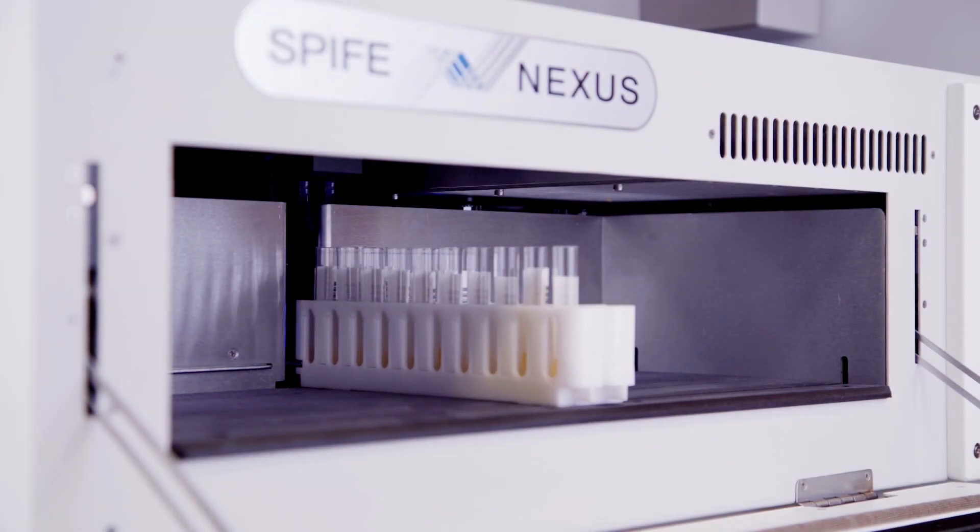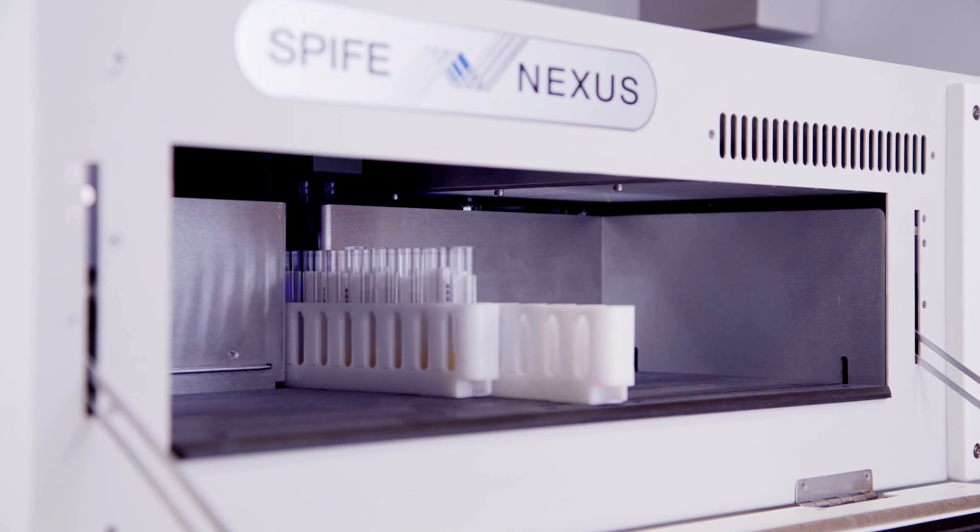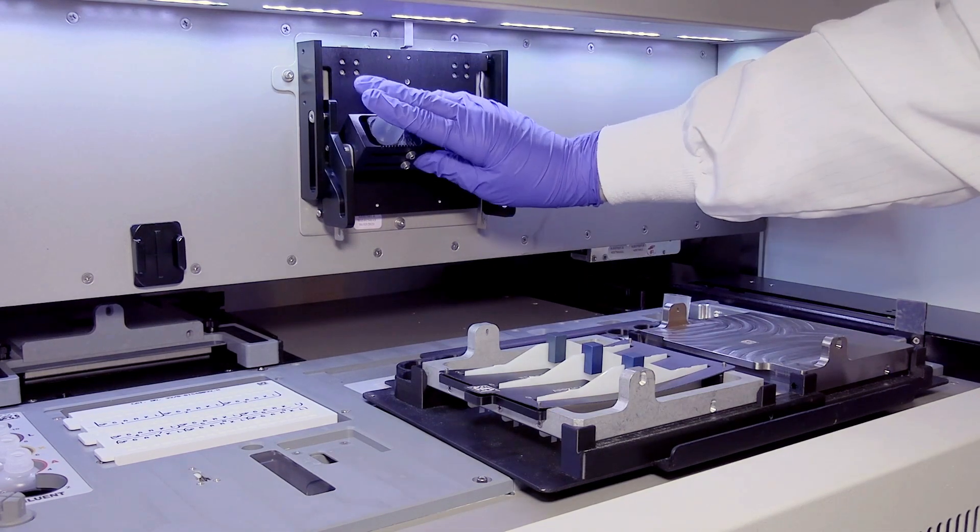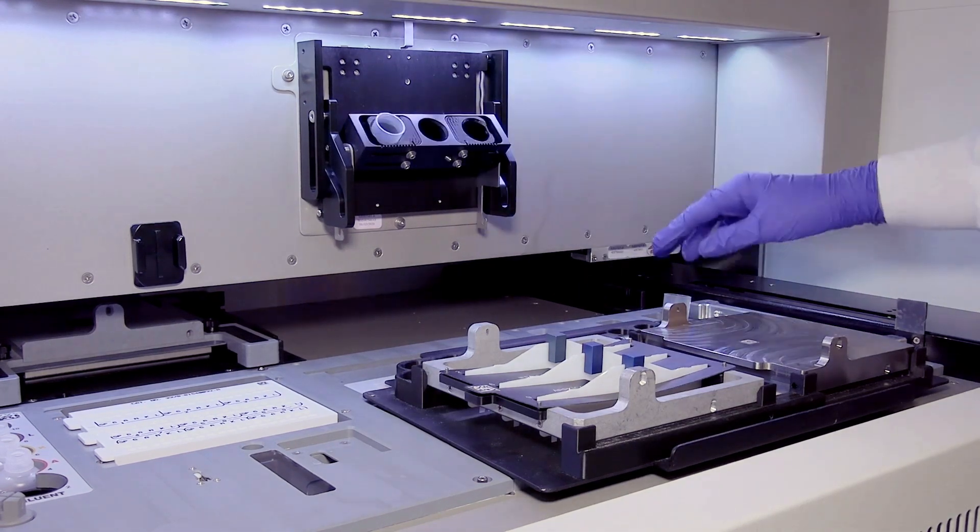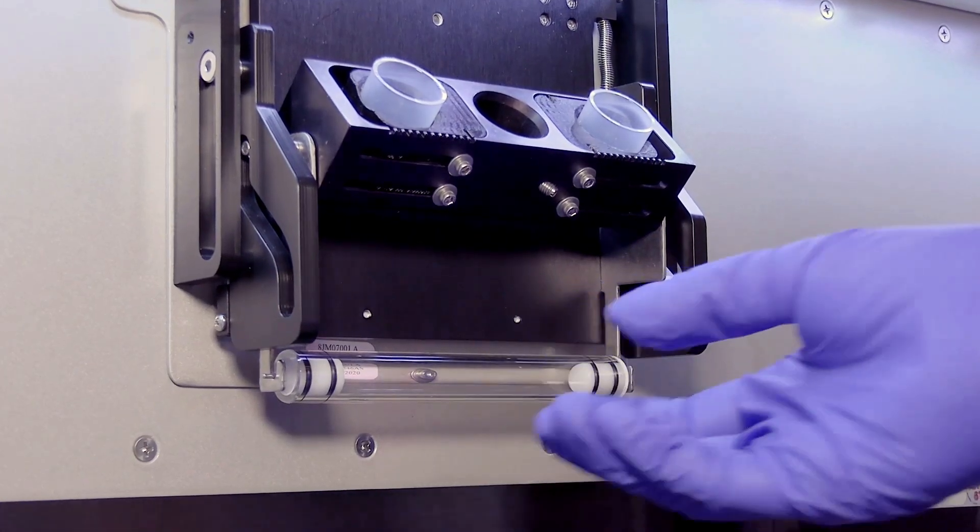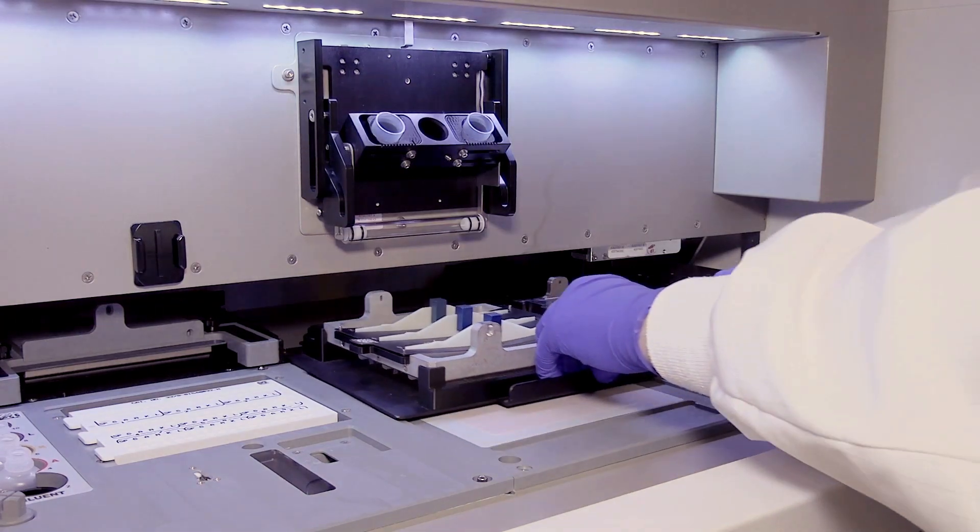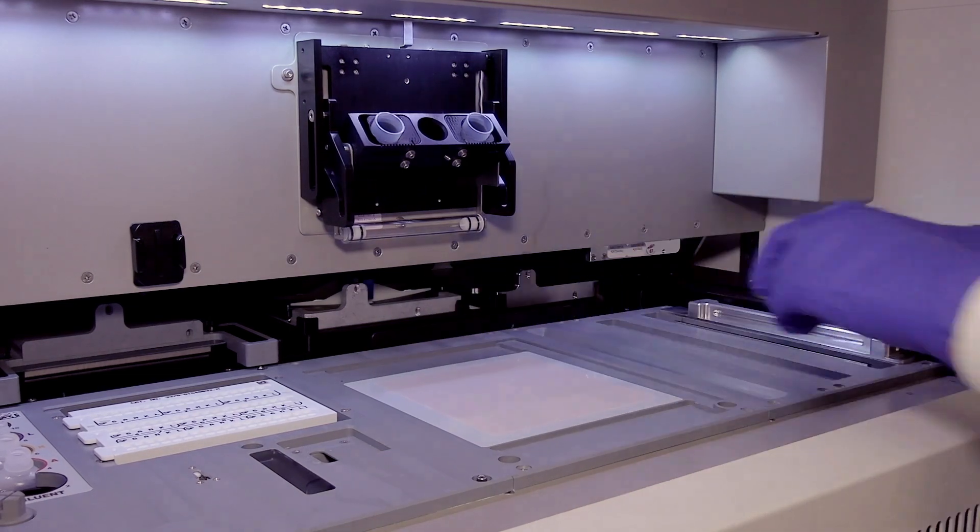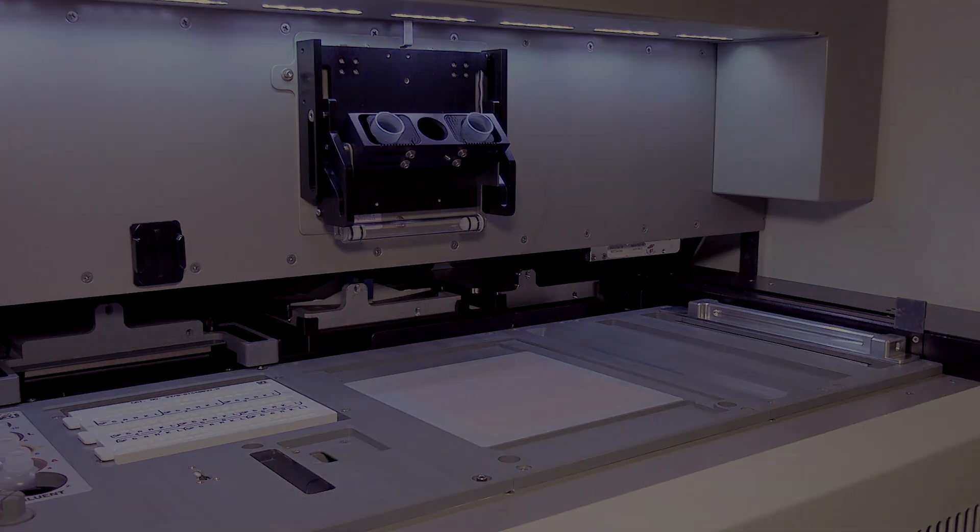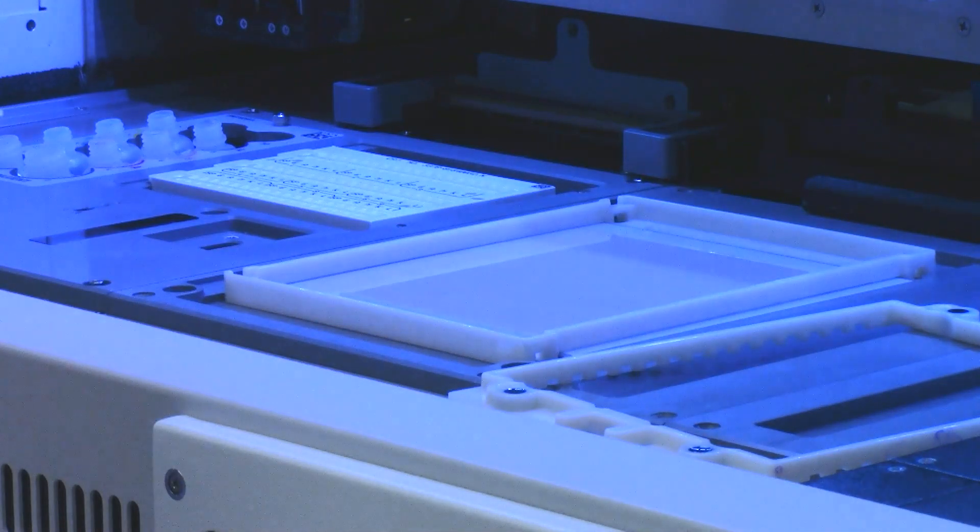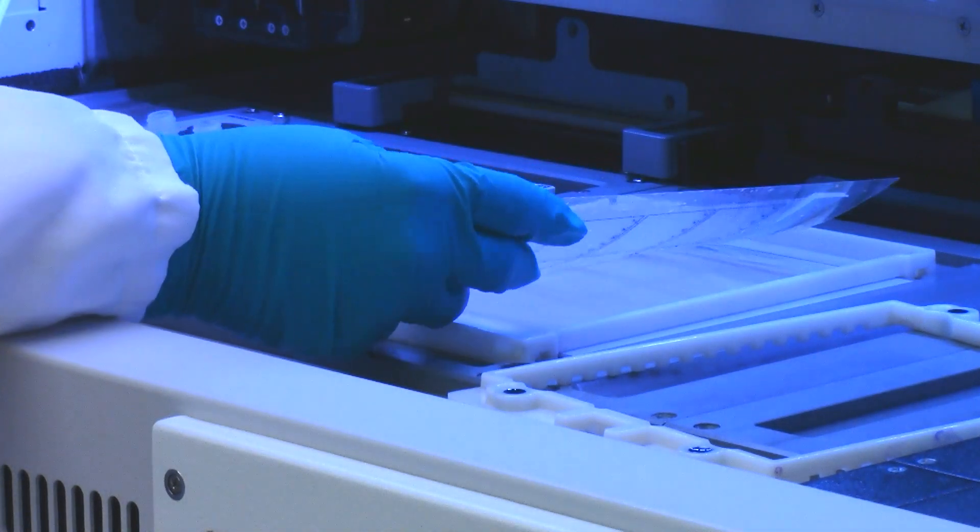Setup is simple. Load the patient's primary tubes or prepared samples, place liquid stain or reagent and the spreader bar in the holder, and slide the benchtop consumables tray into position. The last step is to place the gel on board the electrophoresis chamber.